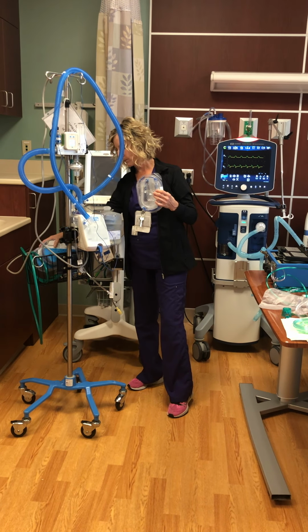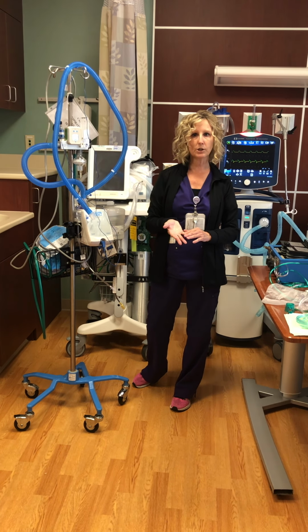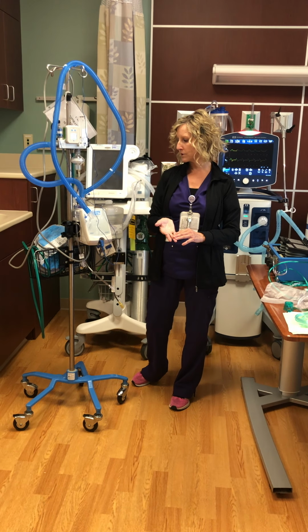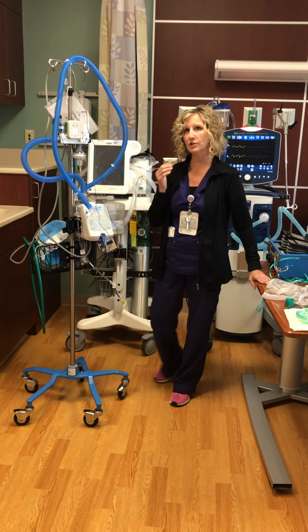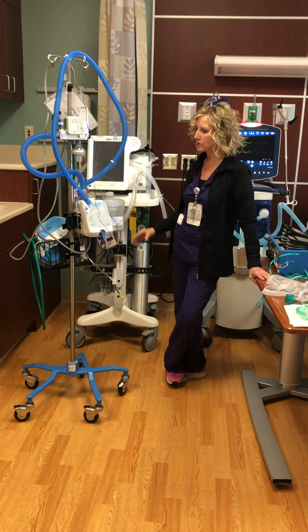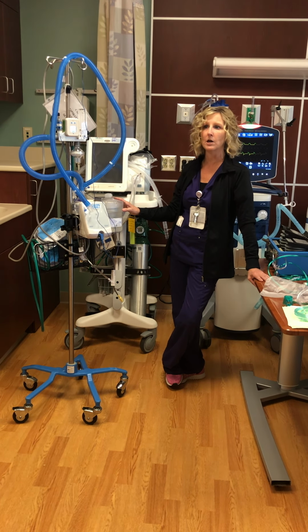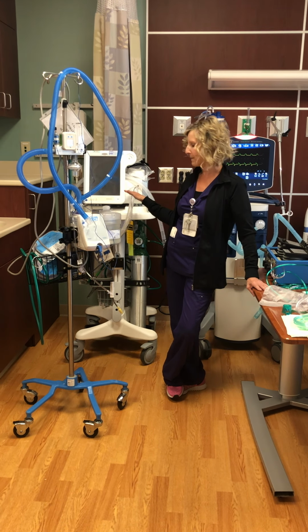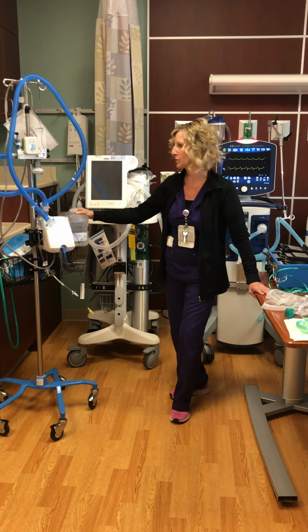It's very comfortable. It's a really good option for COPDers, asthma, pre-vent, post-vent, patients that want to take a break from the BiPAP that we're having a hard time with their respiratory status and oxygenation status. We can give them breaks. They can eat with this because it's a nasal cannula. A lot of times they'll wear this one during the day. They'll wear BiPAP at night. It's a really great option for them. It works well.